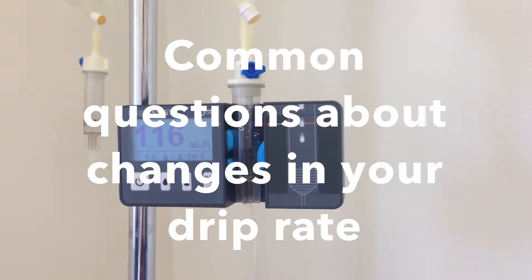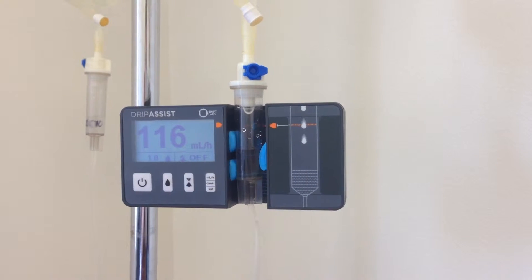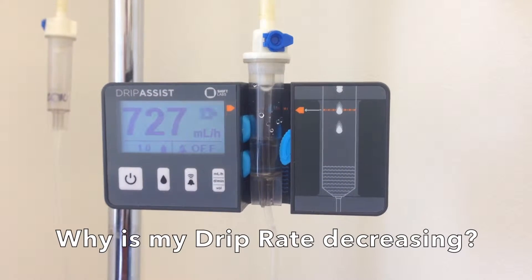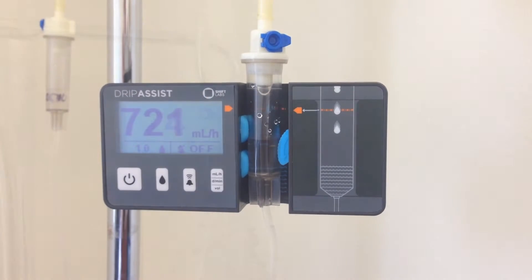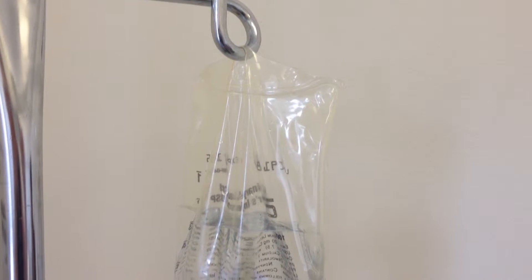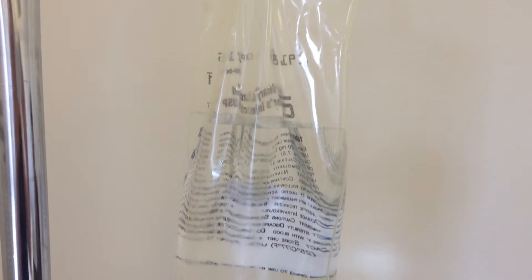Common questions about changes in your drip rate. Why is my drip rate decreasing over time? As the volume of fluid in the bag decreases, there is less upstream pressure on the drip chamber. This will naturally decrease your drip rate over time.